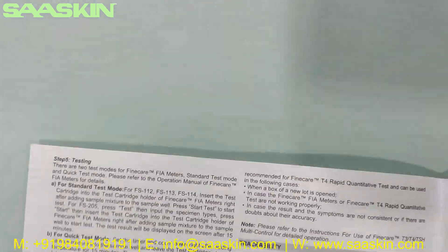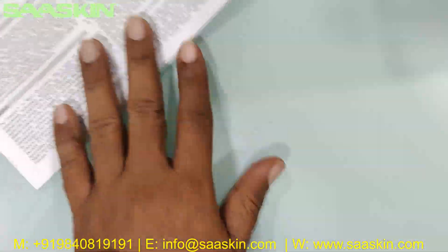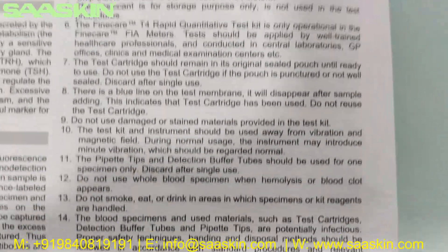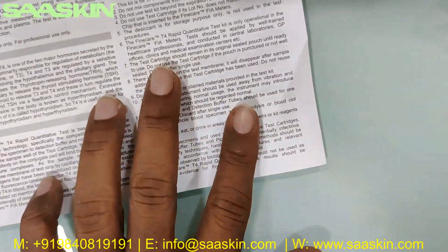This is a complete instruction manual where it talks about your sample collection, test procedures, and how to interpret your results. You have the complete details to conduct the test, including the principles, precautions, and sample collection procedure.